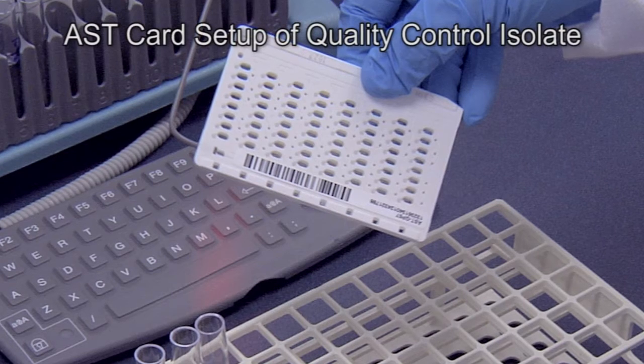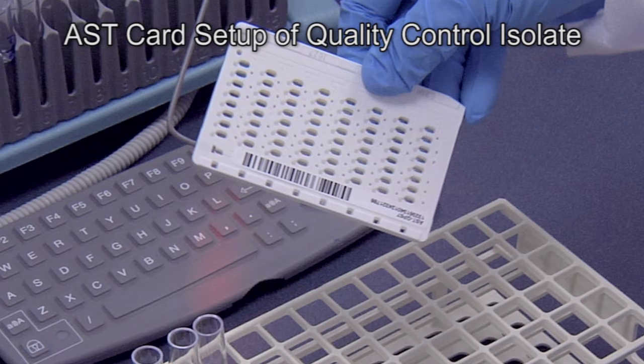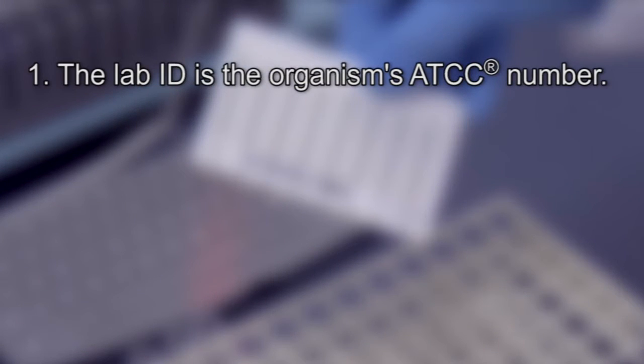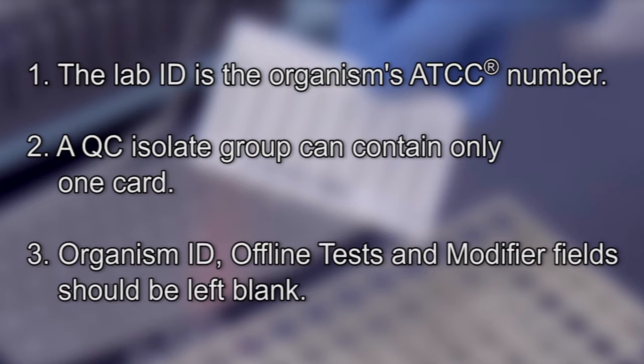Cards to be used for quality control (QC) purposes are set up much like those for patient isolates, with just a few differences. First, the lab ID is the organism's American Type Culture Collection ATCC number, for example, ATCC 29212. Second, a QC isolate group can contain only one card, either ID or AST. Third, organism ID, offline tests, and modifier fields in the Smart Carrier Station should be left blank.